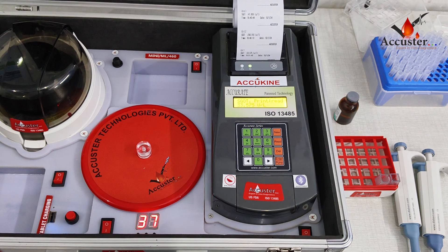The reaction time is important in the SGOT test. The reaction begins after mixing the reagents and samples. The cuvettes must be inserted quickly into the analyzer. Thank you.